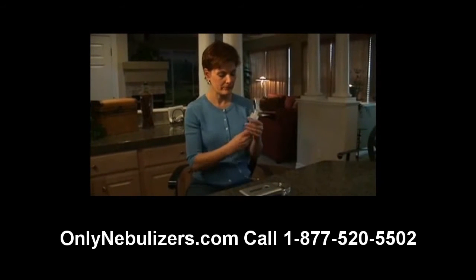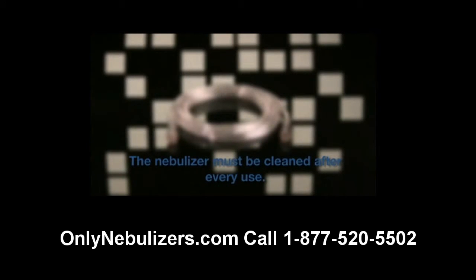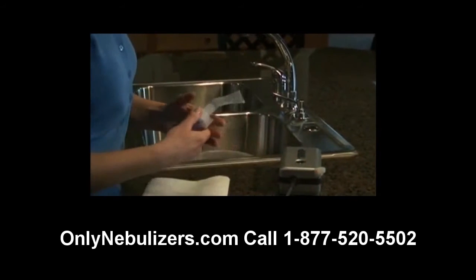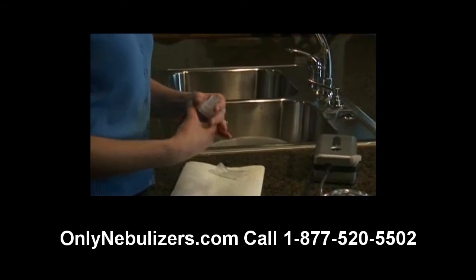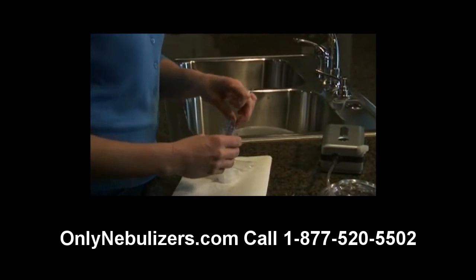When you've completed your treatment, turn off the compressor and unplug the unit from the wall power outlet and power socket on the unit. Without exception, all parts of the nebulizer except for the tubing must be cleaned after every use. The inside of the tubing does not have to be washed because only filtered air passes through it. Start by disconnecting the tubing from the air inlet connector. To disassemble the nebulizer, first remove the mouthpiece from the nebulizer cap by grasping firmly and pulling straight up. Do not twist the mouthpiece. Next, remove the nebulizer cap by turning counter-clockwise, then remove the baffle from the medicine cup by lifting straight up.